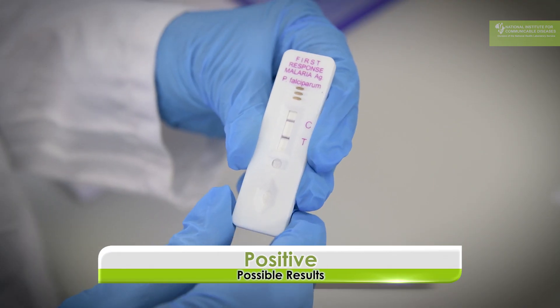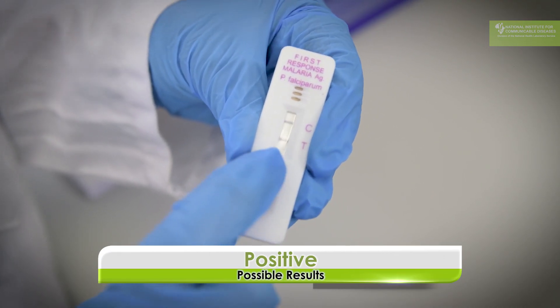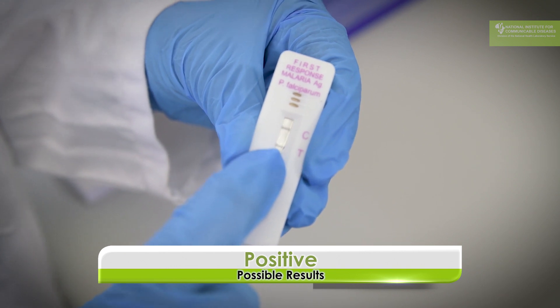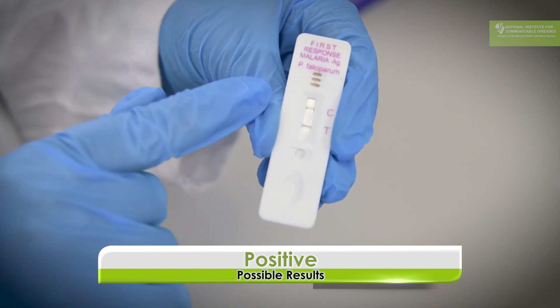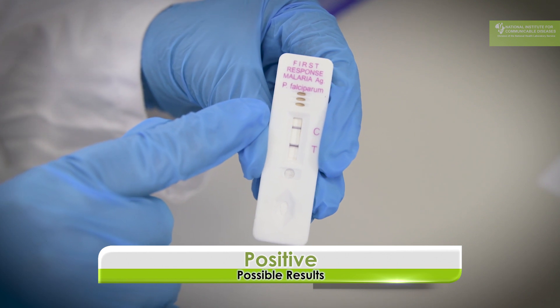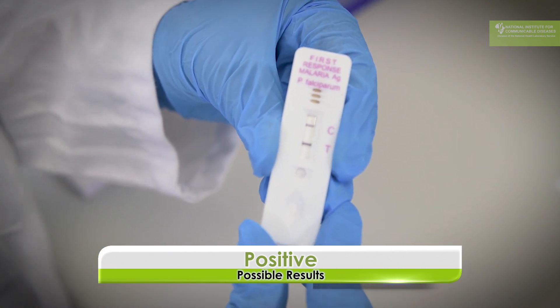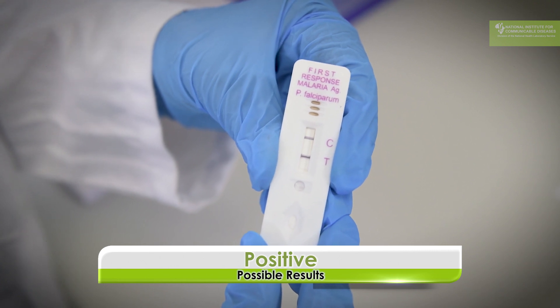There are three possible outcomes from the test: a positive result, a negative result, or an invalid result. This is a malaria positive test — it's a very strong positive because you can see a very strong line at the test line, and the control line is also present. You can call this a positive result because both a control line and a test line are clearly visible.